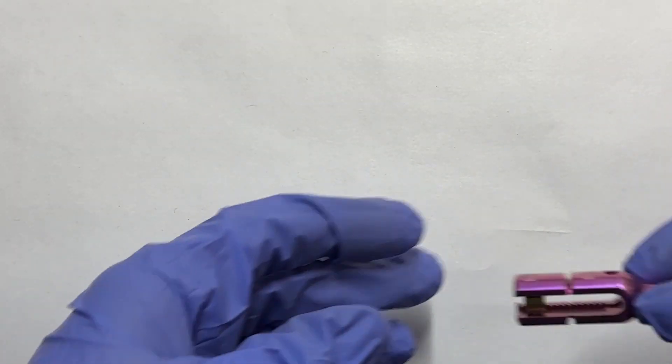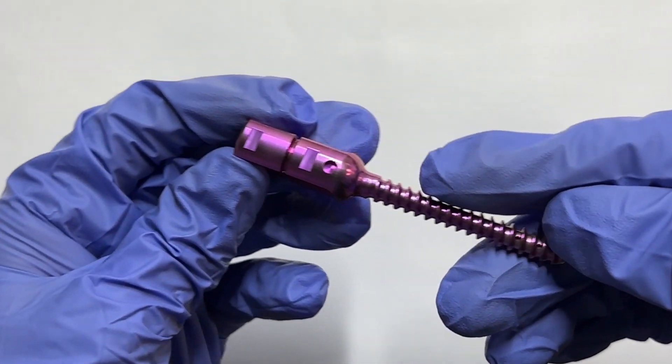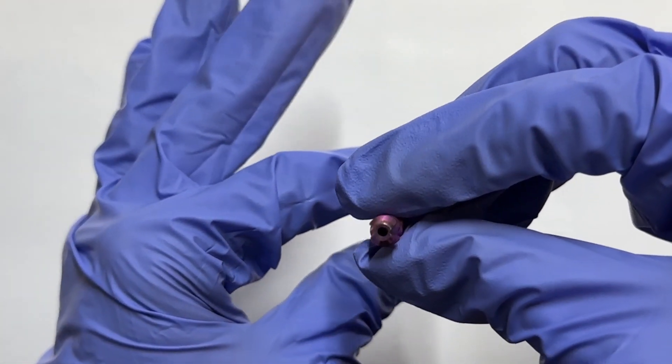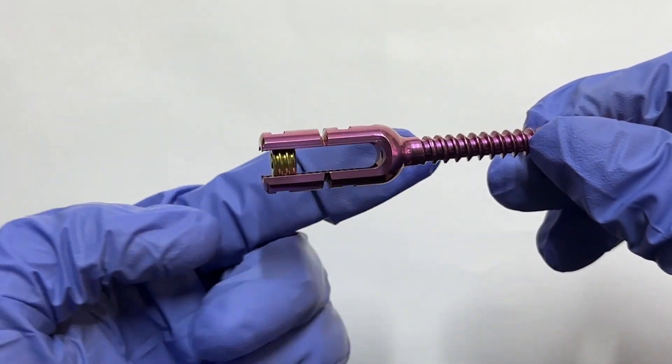Introducing pedicle screws, the indispensable surgical implants revolutionizing spinal surgery. Crafted from biocompatible materials like medical grade titanium and stainless steel, these screws guarantee harmony with the human body.